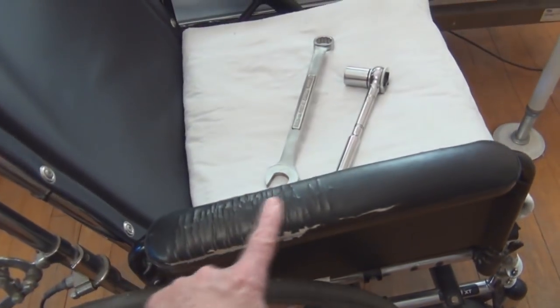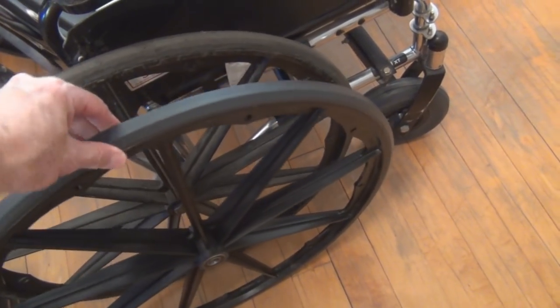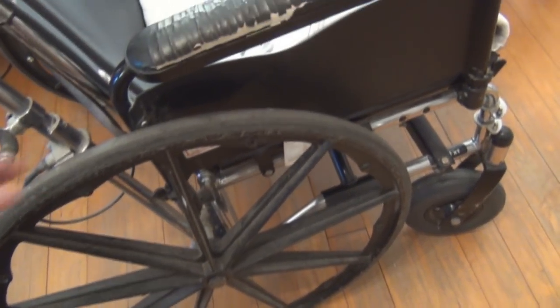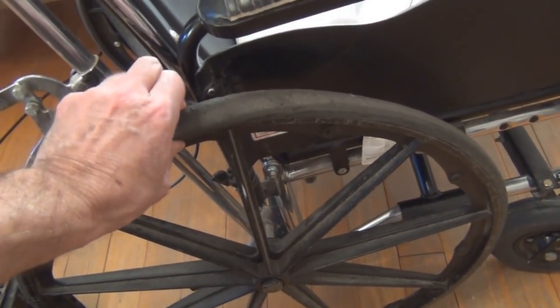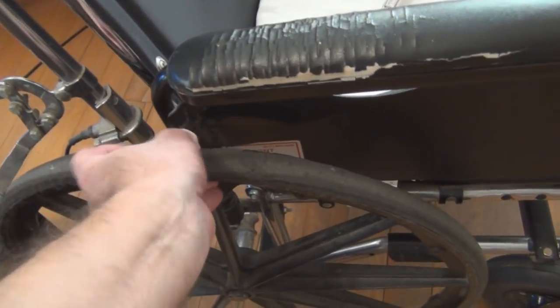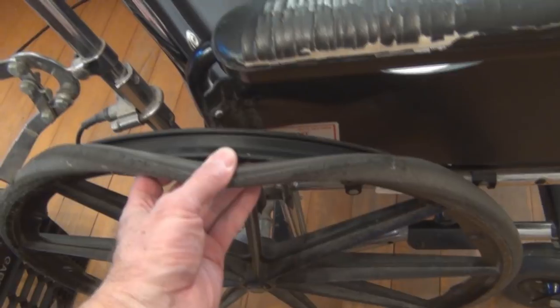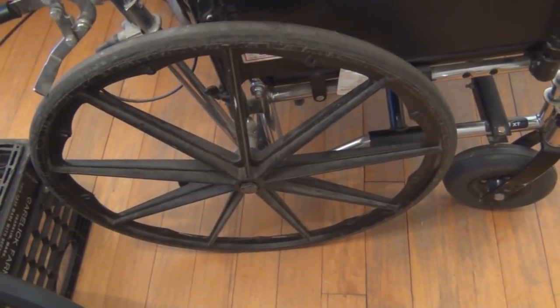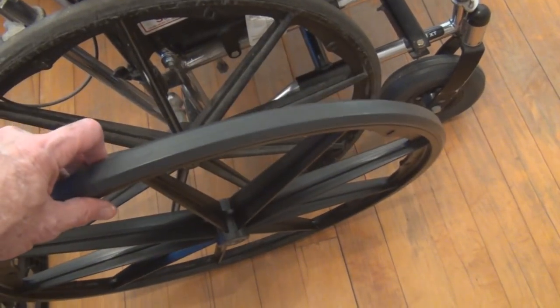They're overdue. I also bought some armrests. Guess how much these wheels cost? These rubbers — if I do a sharp turn in the wheelchair van that has the original carpet down, they get caught and it pulls the rubber off of the wheel. So I'll have to try to back her up and re-thread the tire onto the rim.